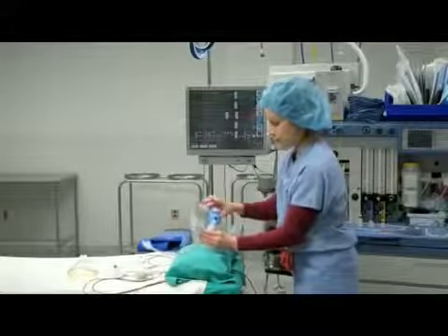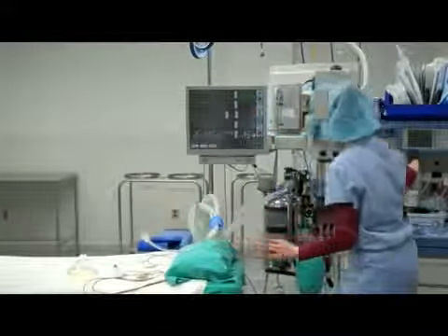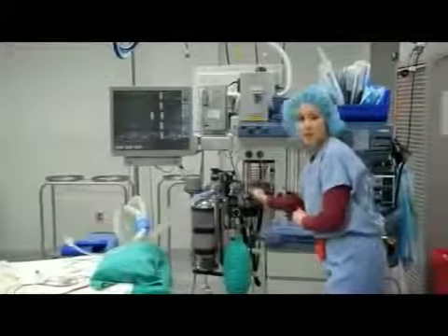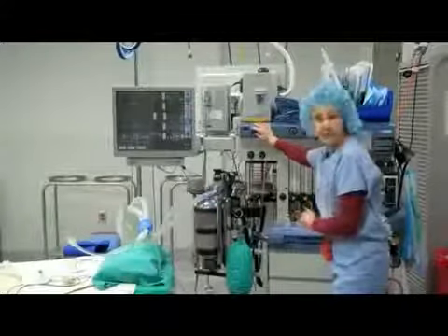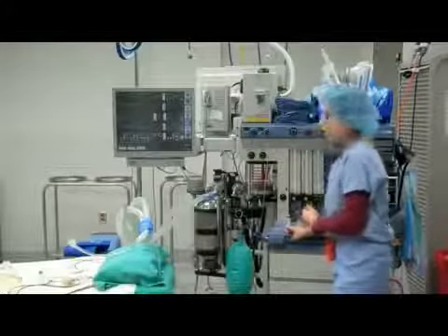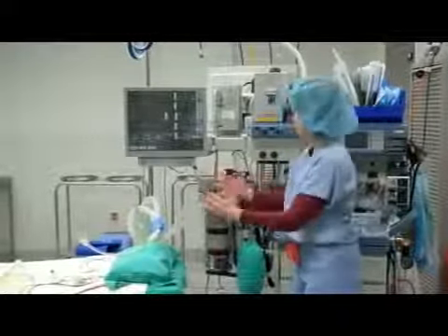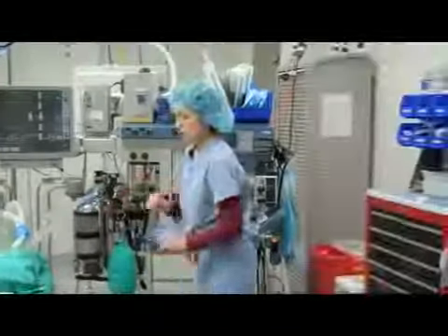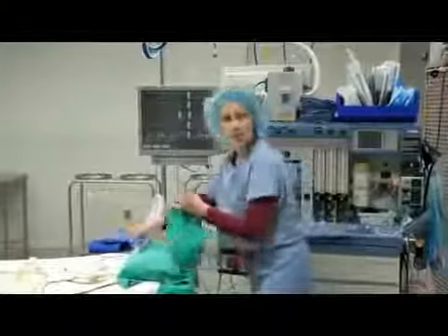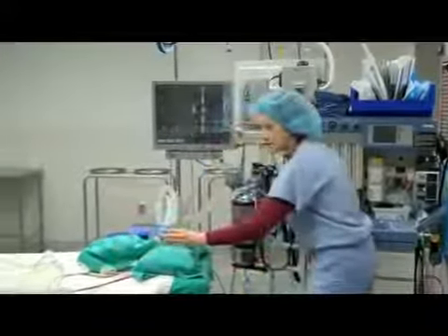So what we do is, once the breathing tube is inserted into the mouth, we then place the patient on anesthetic gas and then place them on our ventilator. Because what we've done is we've relaxed the patient and we've taken away their ability to breathe. And so now we need to take over the breathing for them. So for the purposes of this demonstration, I'm going to simulate a patient's lung. This green bag right here represents a patient's lung.